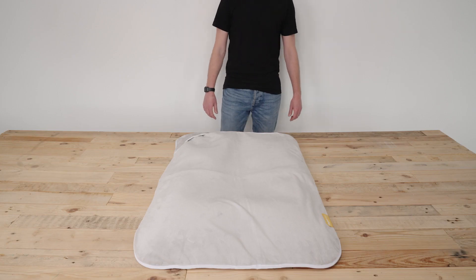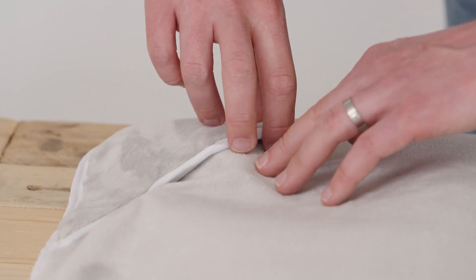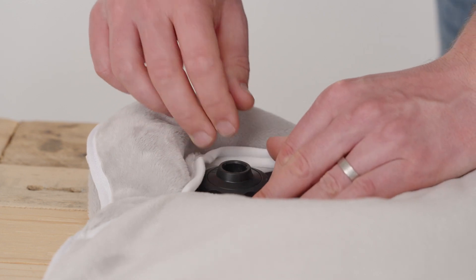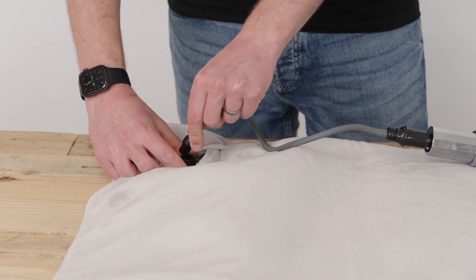Molding the Neo. Locate the valve, which is on the top left-hand side of the product. There is an opening in the cover to enable quick and easy access. Close the valve by screwing it in a clockwise direction until tight. This will prevent air from being let in.